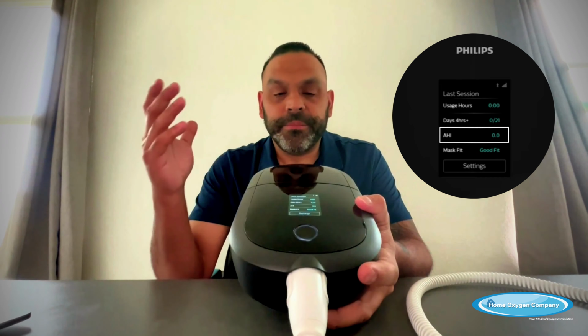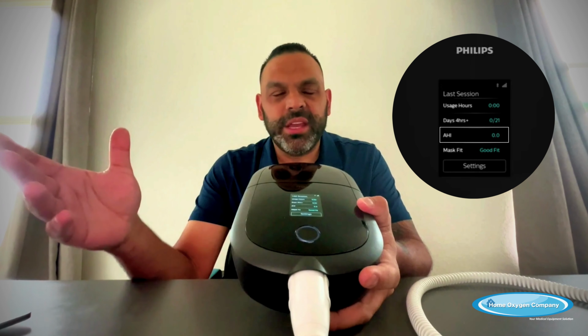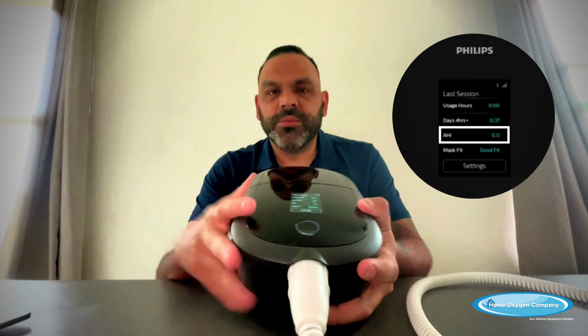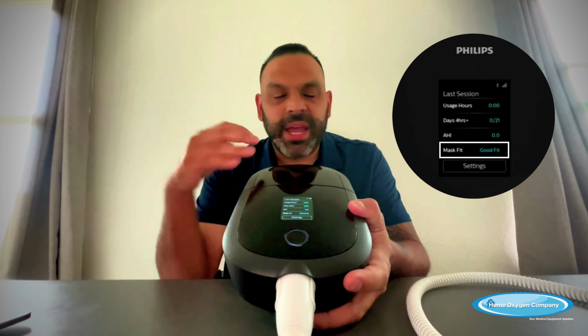So we expect that number to be high the first week or so if you're a brand new user. But after a few weeks on it, if your number is still high and everything's working and you're putting your mask on and there's no big leaks coming out, that's when you need to give us a call and figure out why your machine or why your body isn't responding to the machine the way it should be. And then we can make adjustments going forward. The last option there is your mask fit. If your mask looks good, everything, it'll just say good fit.